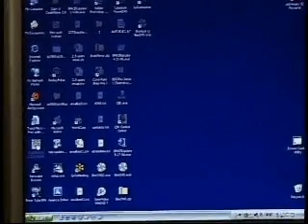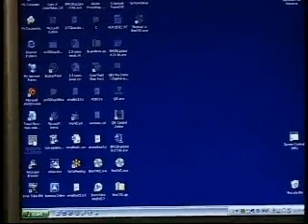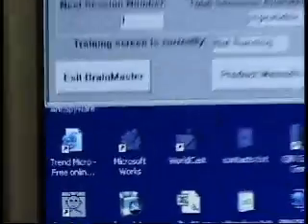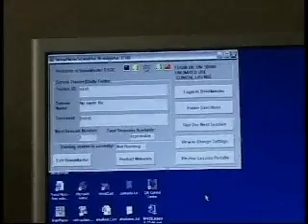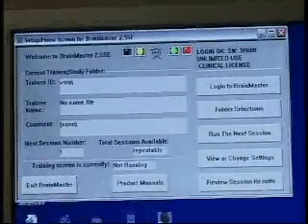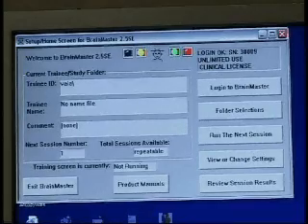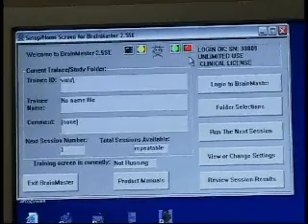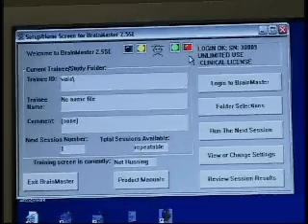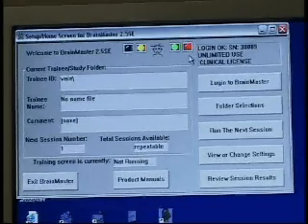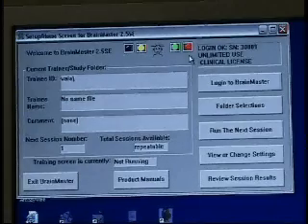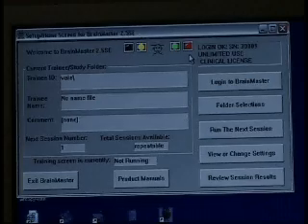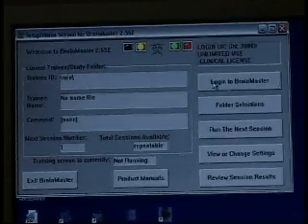We simply click the 2.5 BrainMaster icon, and our setup home screen for BrainMaster 2.5 SE appears. Taking a quick moment to look at this screen, you notice I've already been logged in. But if this is your first installation of the hardware and you're just entering the software for the first time, more than likely your login says OK in BASIC. To get properly logged in, we click the Login to BrainMaster button.